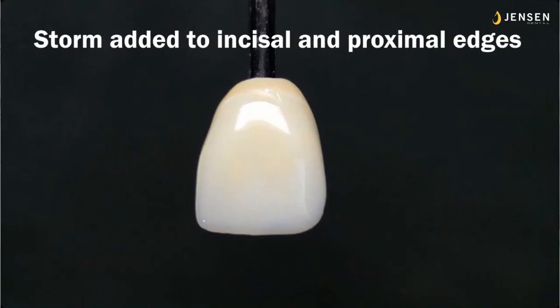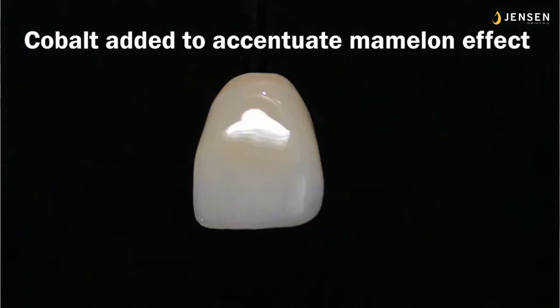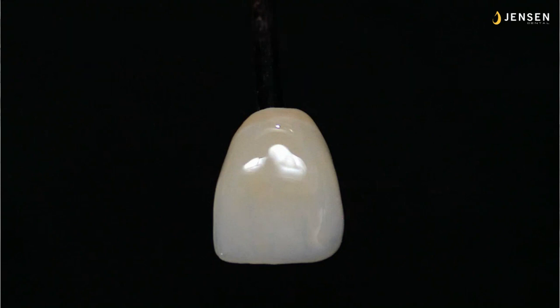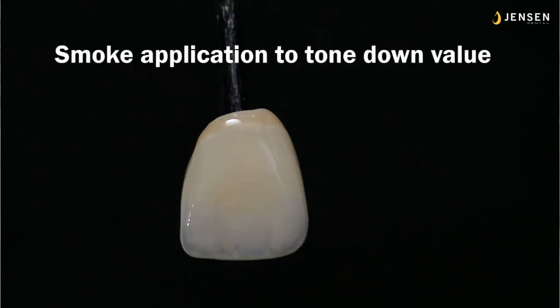You can see the fine hypocalcification. And then I've added storm to the proximal incisal edges. And I've added the vertical striations. And then I added some cobalt because it didn't show up so much. So you can see those deeper bluish lines. And I added a little shade D for a mesial mamelon. You don't have to just use the mamelons we have in the kit. You can use whatever color is appropriate. And the coral. And the spring halo. Spring works great.